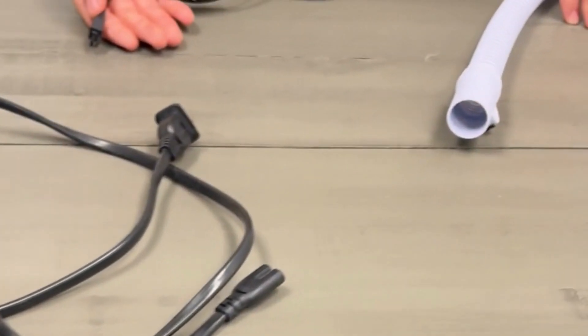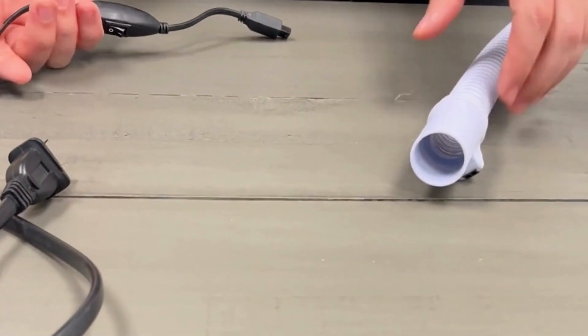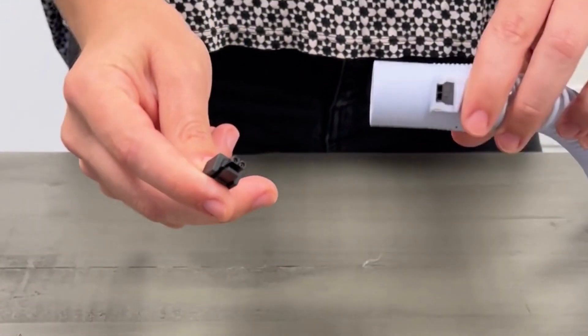Assembly is as follows. Plug in the heated tubing adapter cord to the end of the tubing that has a small opening with copper wires.